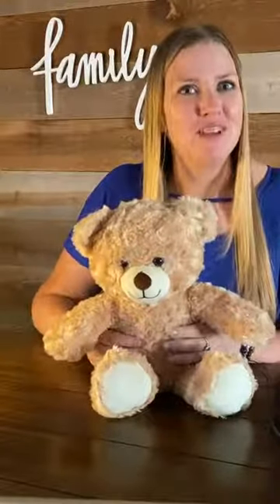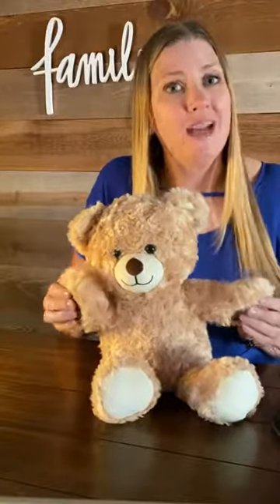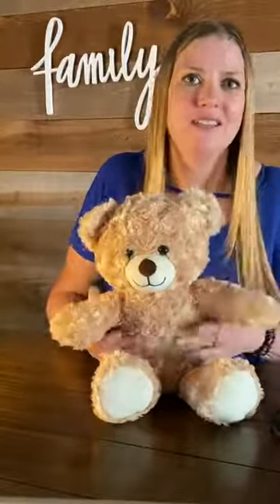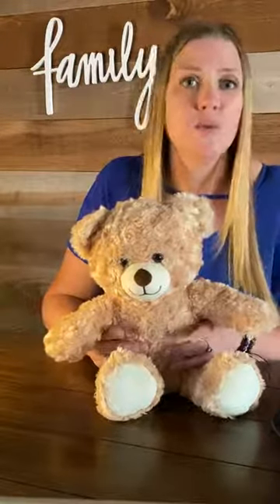Now that you recorded some information in your MediTeddy, you can also check your statistics. They can be checked by you, your doctor, or even a close family member or friend. We just hold both paws down until MediTeddy starts talking, then you'll select either the yes or no paw to begin or end. Your statistics are given on a rolling 7, 14, or 21 day statistic. Let's take a listen.